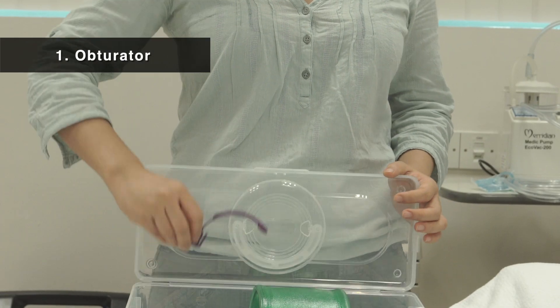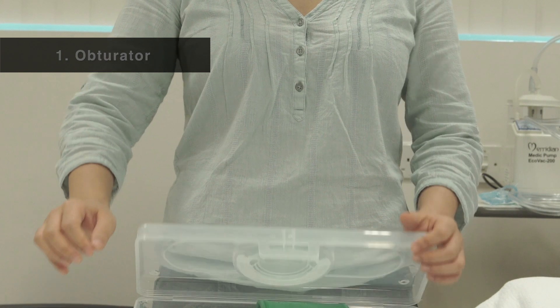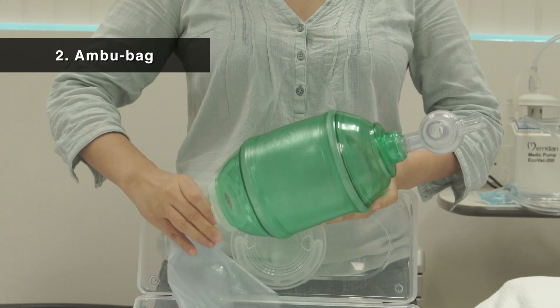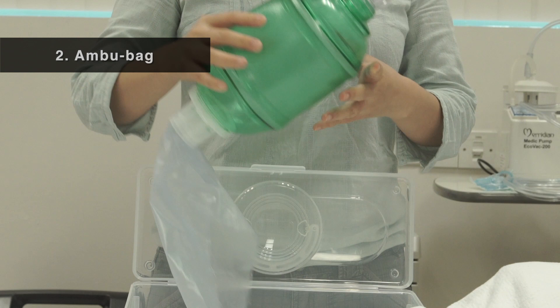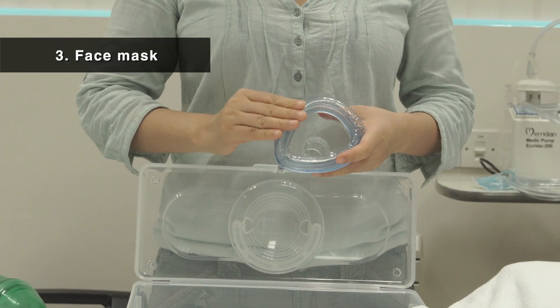The emergency pack should contain an obturator, one ambu bag, and a well-inflated face mask.